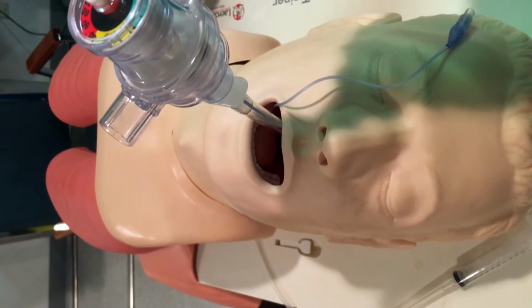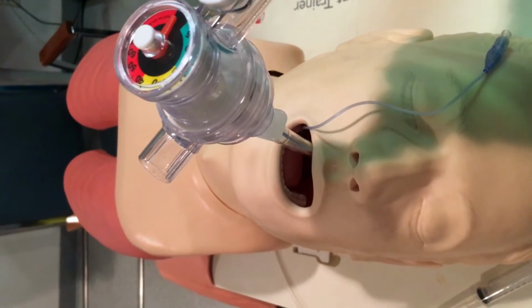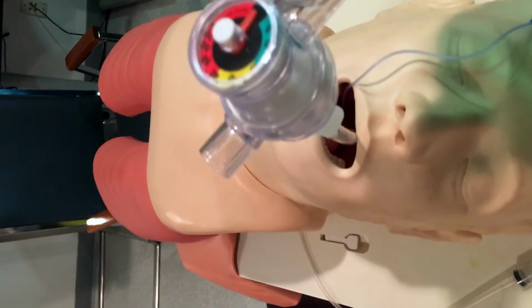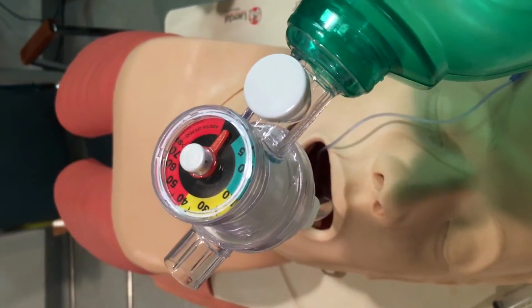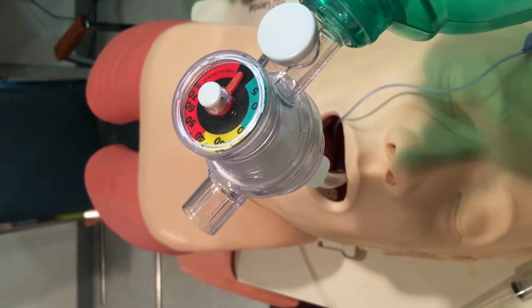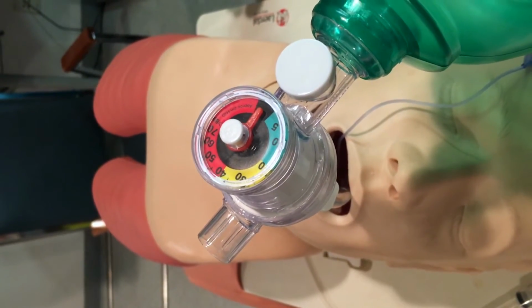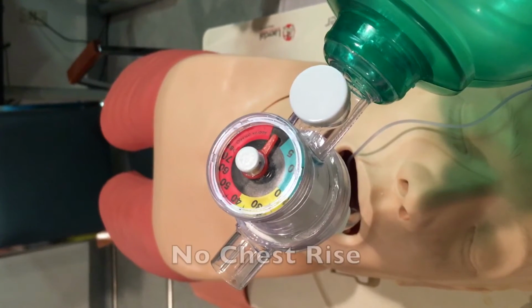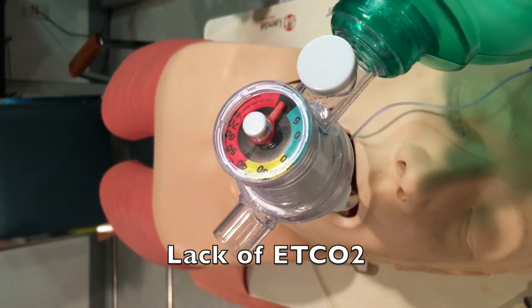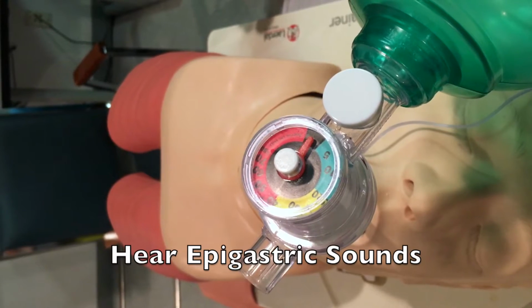Well, let's say you have a good depth, you felt really good about your intubation, and then when you check for breath sounds, you see that you actually inflated the stomach instead of the lungs, which can happen. It's an unintentional esophageal intubation. People call it when you tube the goose. It's really important that you be able to identify the signs: there's no chest rise, there's a lack of end-tidal CO2 waveform on the monitor, you don't have bilateral breath sounds, and you auscultate epigastric sounds over the stomach.